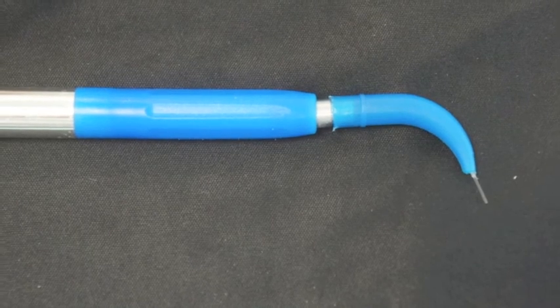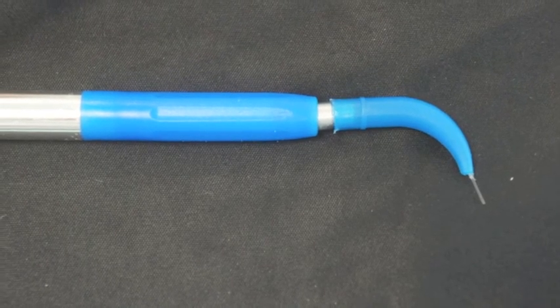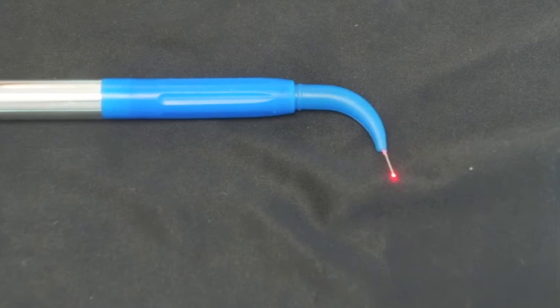Not like here where the connection you can see the metal showing between the cannula and the tip. But here it is firm in place and the aiming beam is coming out.